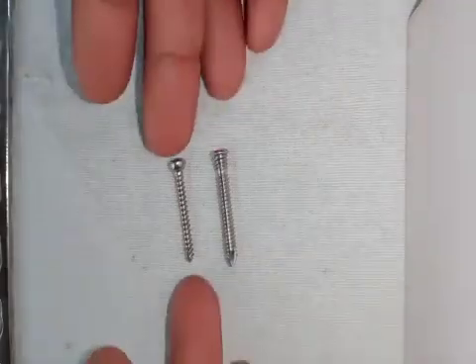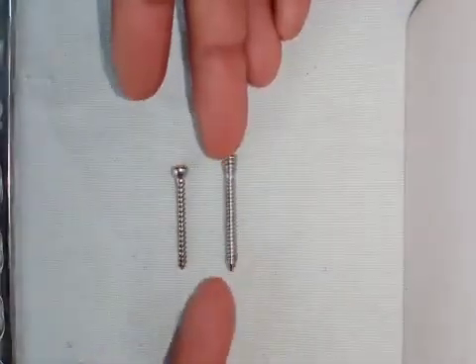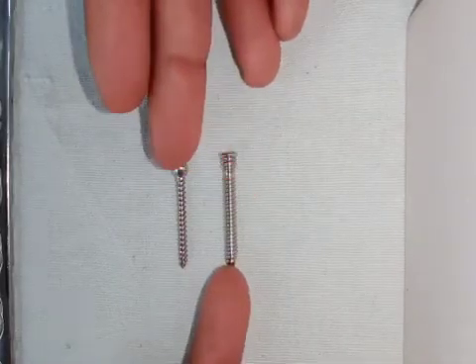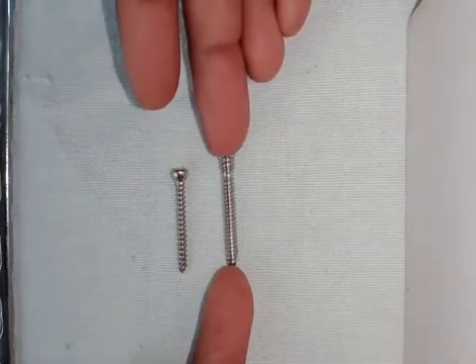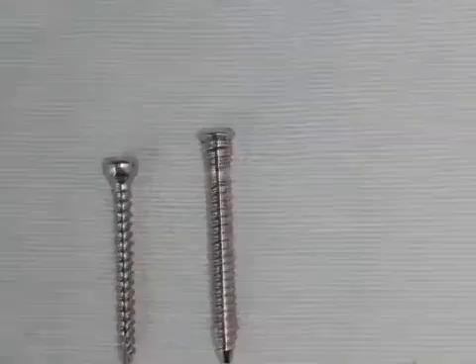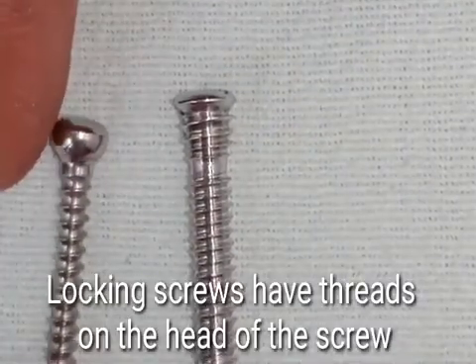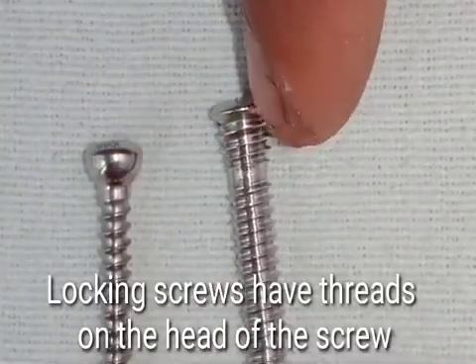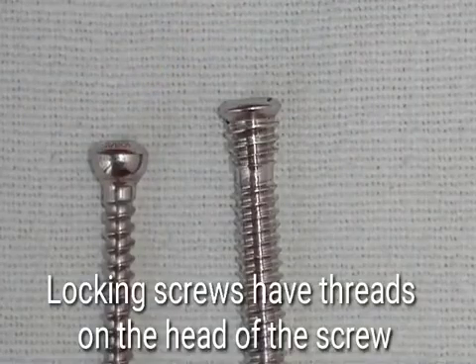Here is another type of screw which is very similar to the cortical screw. You can see that the threads of this screw are even thinner than those of the cortical screw. If you look carefully, you will see that the head itself has threads, whereas the head of the ordinary cortical screw does not have any threads. This is a special type of screw called the locking screw.